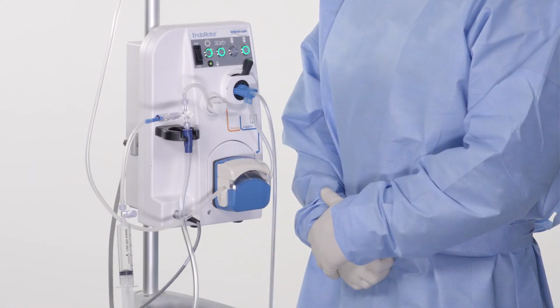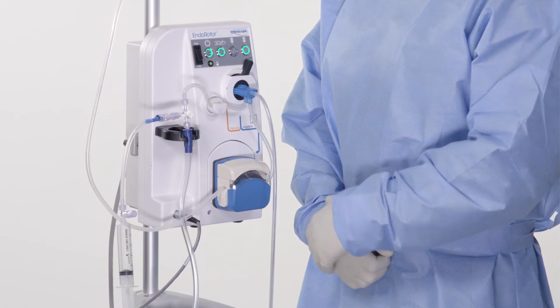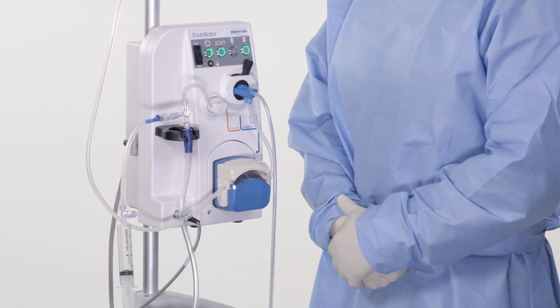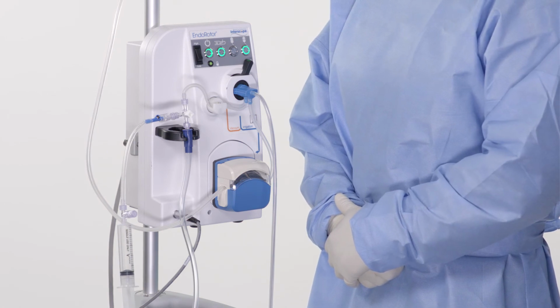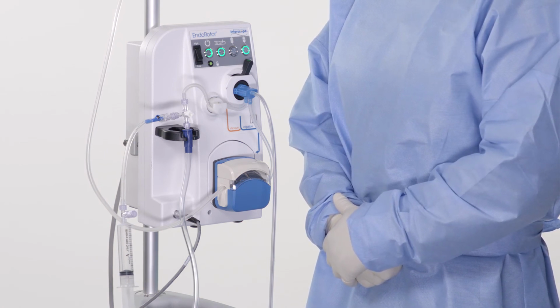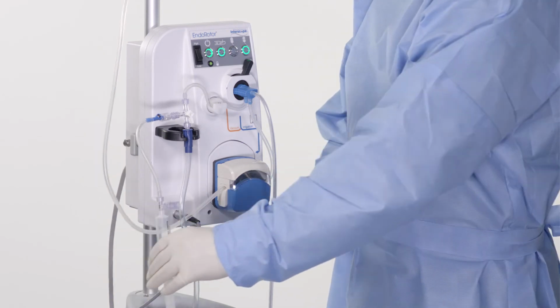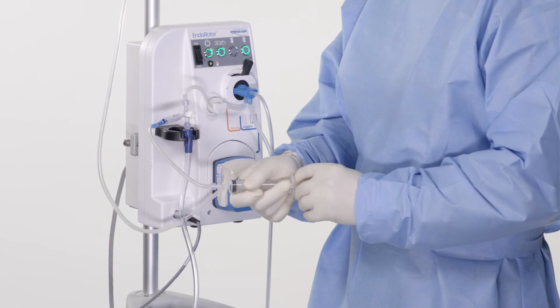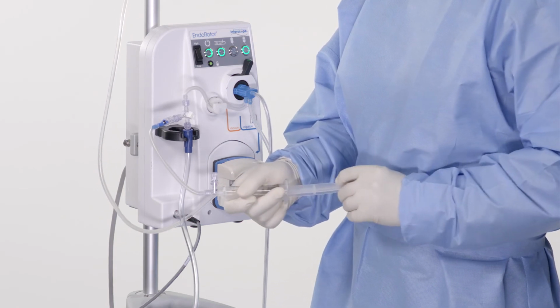During the procedure, the catheter may require purging. To purge, switch the stopcock on the purge kit to turn off vacuum to the catheter. The blade should be activated during this process to ensure the window is open. In a quick motion, depress and pull the syringe plunger back and forth several times. No refill of air is required.